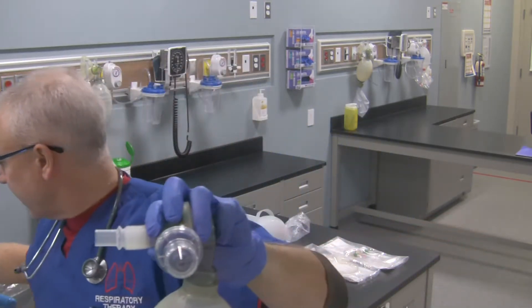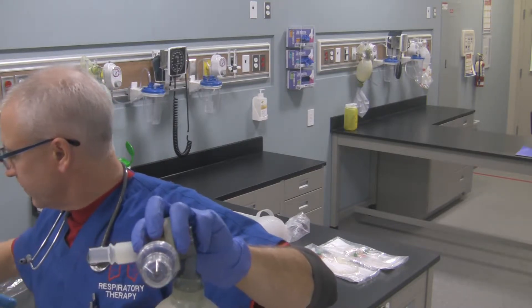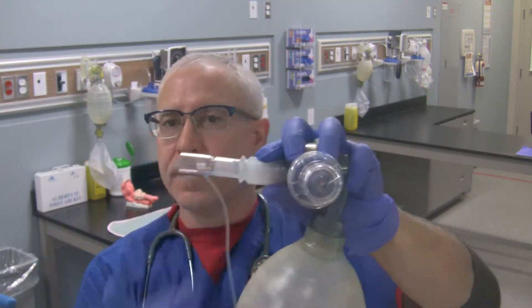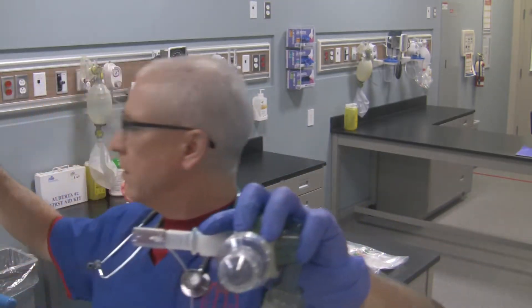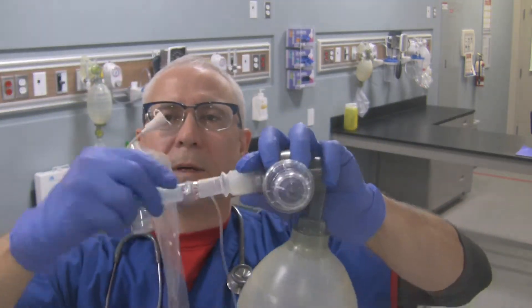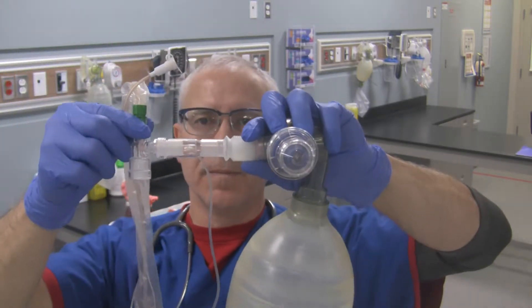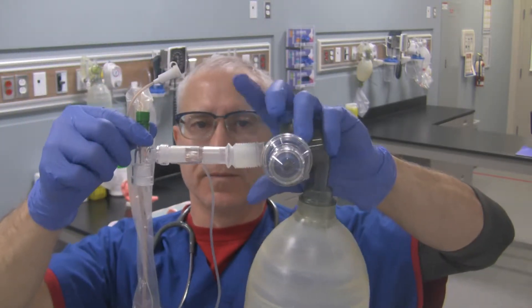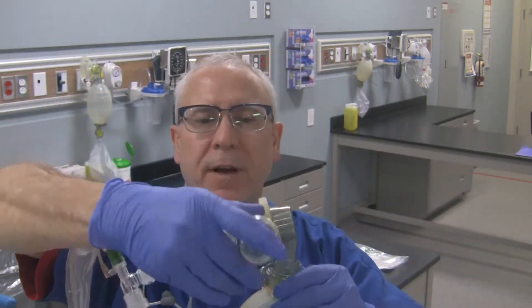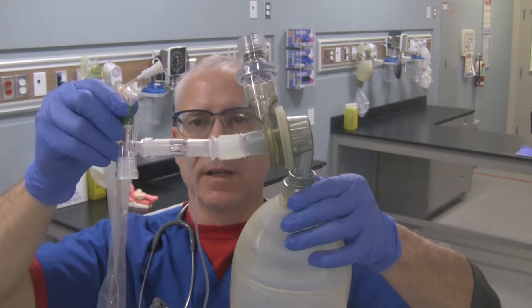Grab your end-tidal CO2 adapter — goes there. Then grab the closed suction system like so. Now you're ready to attach this to the endotracheal tube. And that's all there is to it — all the components for switching over from bag valve mask to bag valve tube ventilation.